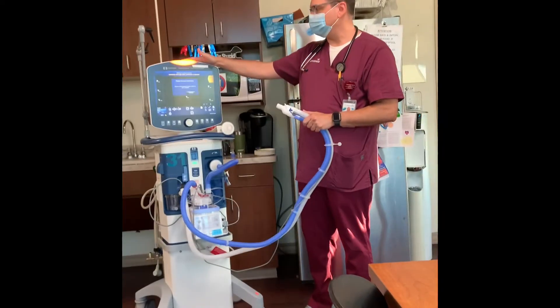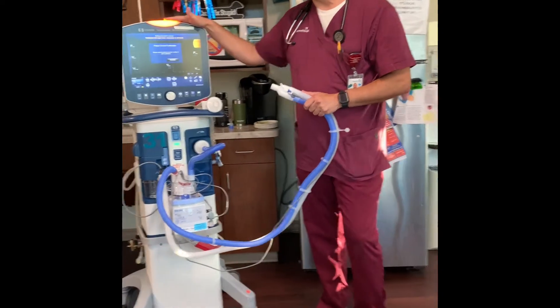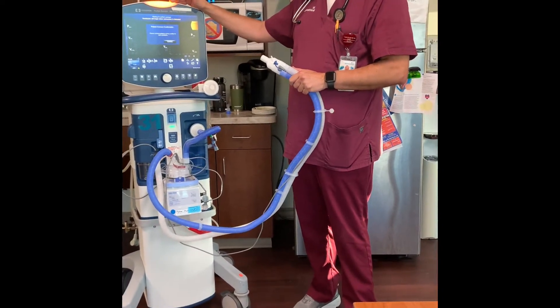This is going to be a very concise 15-minute lecture on mechanical ventilation. I'm Craig, Staff Educator for Respiratory.